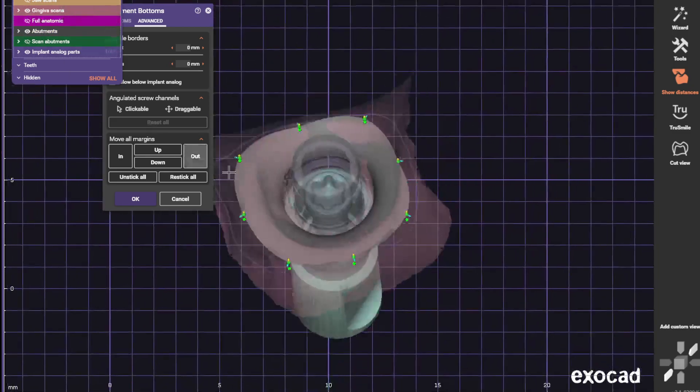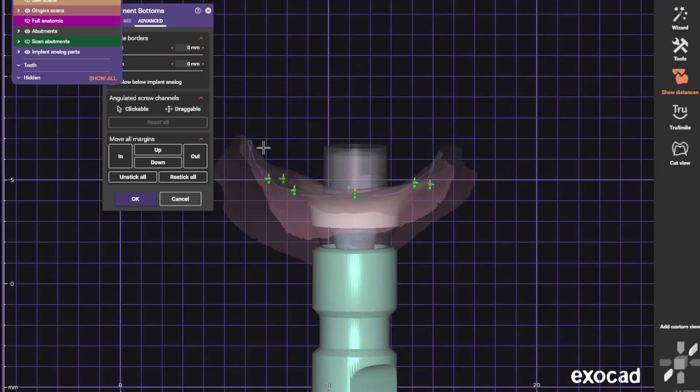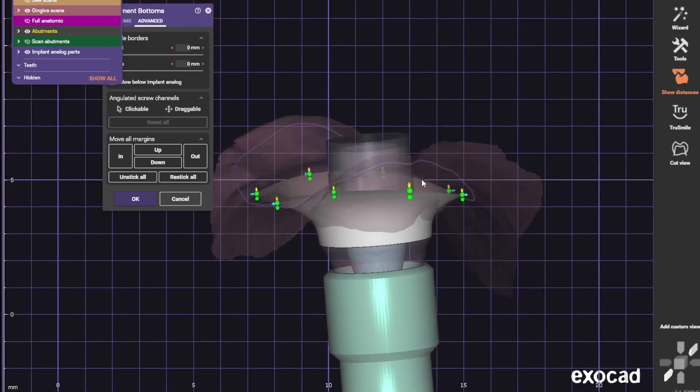Okay, now let's check the margin. See, it's a little bowed right here. Pull this out, drop these ones in. Okay, perfect, perfect.